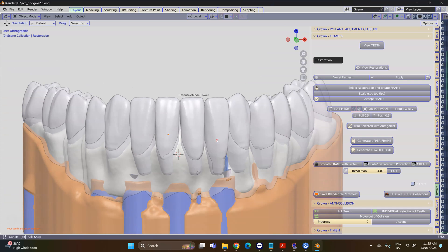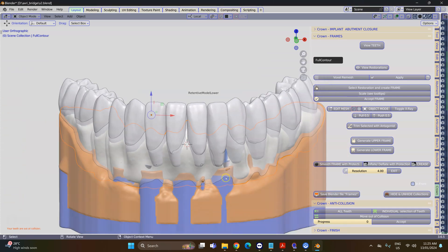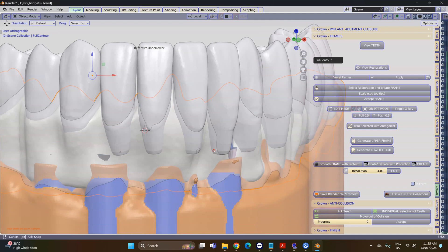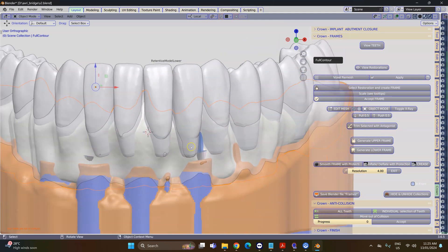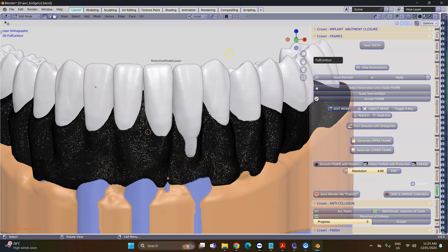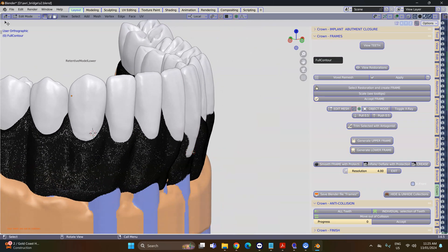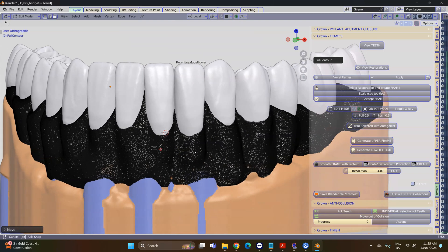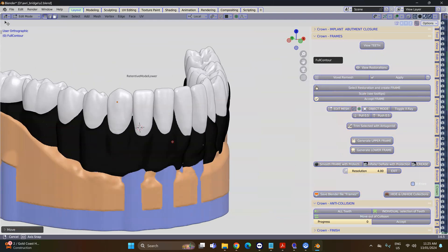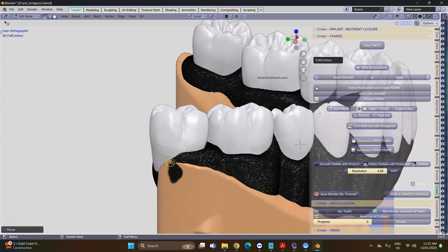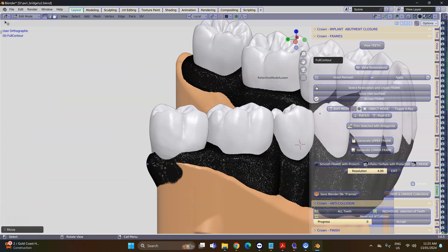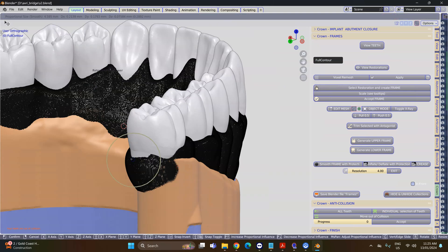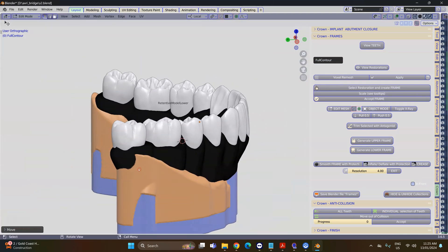In this next step, I want to cut those teeth with the original full contoured gum so we can actually get it to cut correctly. But because the cutting tool—the actual full contour gum—isn't quite right, I'm grabbing the mesh in edit mode with proportional editing on to a better location so that when it does cut through my teeth, it is a solid cut all the way through each and every tooth.